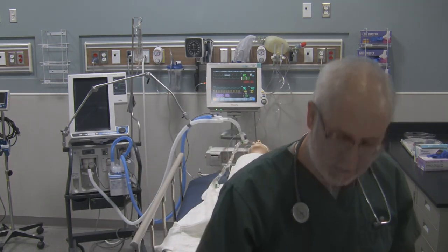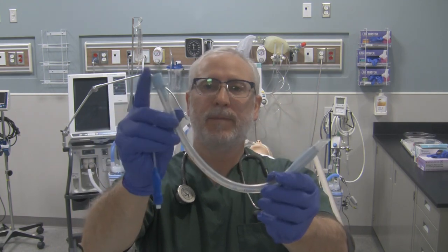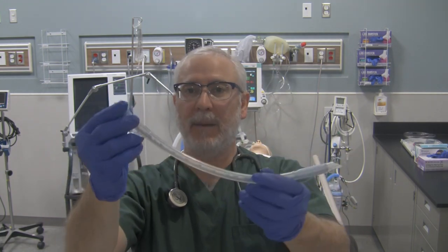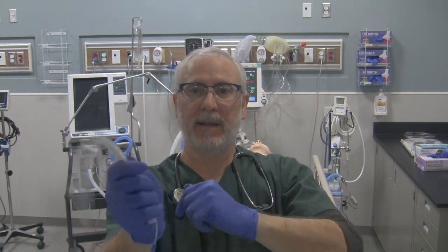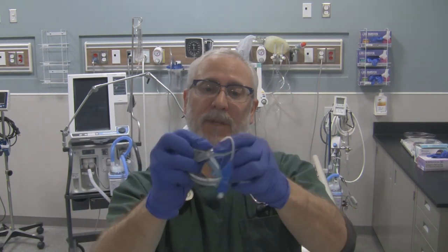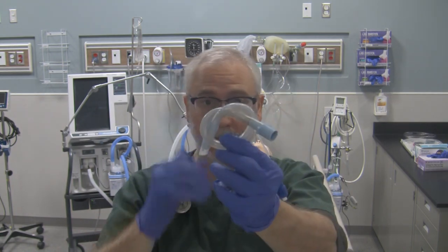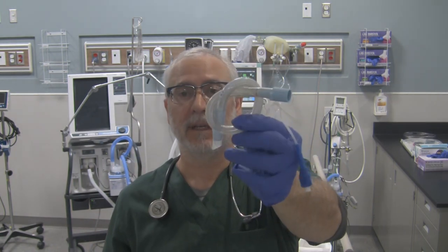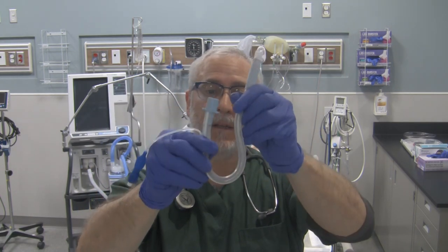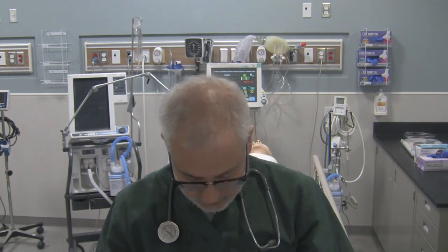Another tube is called the reinforced tube, also called the armor tube or spiral wire tube. It has your typical patient adapter end, distal end, Murphy's eye, and a flat or tight-to-shaft cuff, plus pilot balloon line and pilot balloon. It is a very pliable tube — it just moves around and can do a lot of different things, even tie in a knot. This type of tube is used when you have to position your patient in extreme head positions, because you can conform the tube like a pretzel and it doesn't kink off. The reinforced spiral wire tube prevents kinking — a big benefit for any surgery requiring extreme or varied head positions.